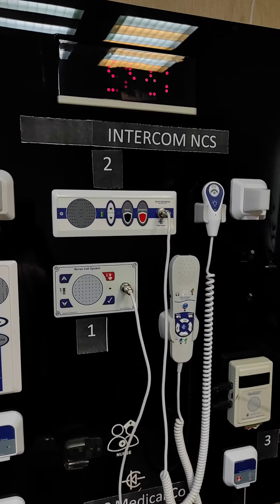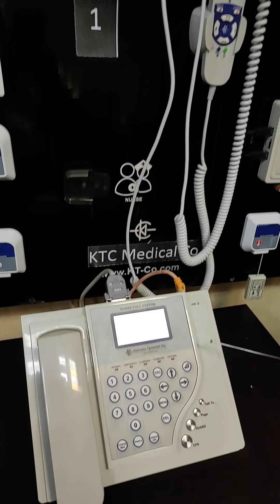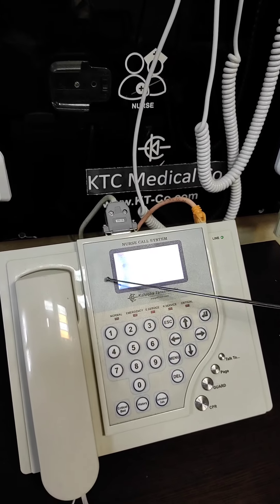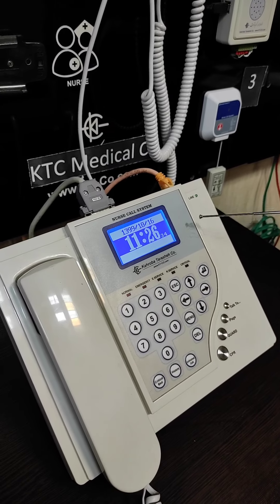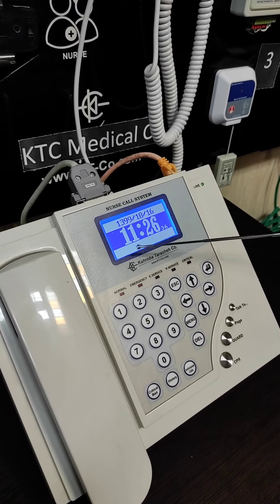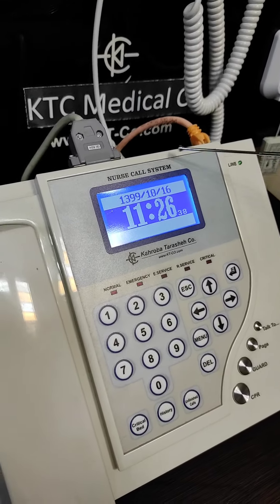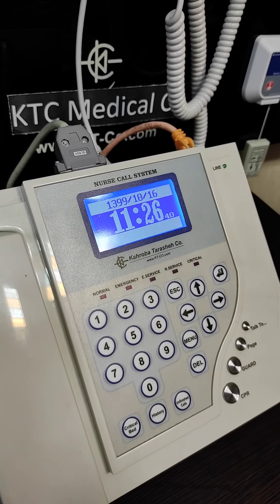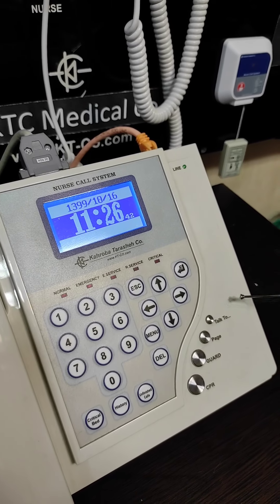And then in the management center we have the staff console. The staff console also has one LCD that is used to show the location of the initiated call. And it also has some other dedicated buttons, as you see.